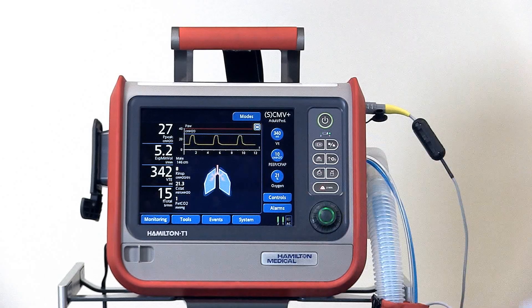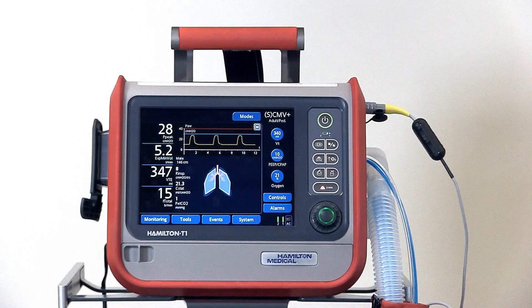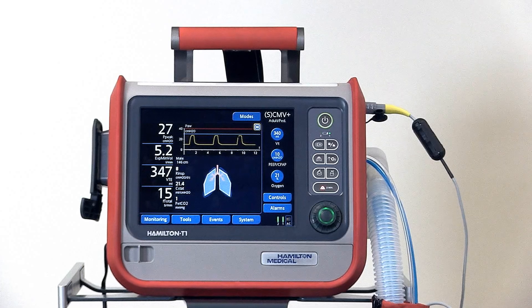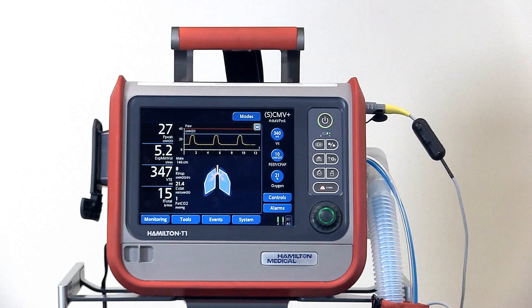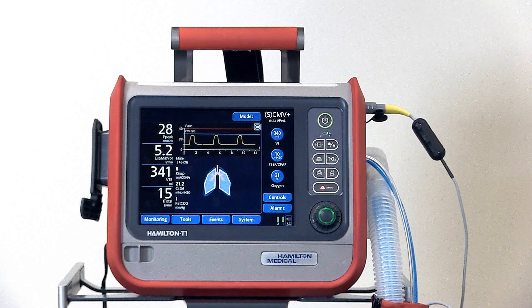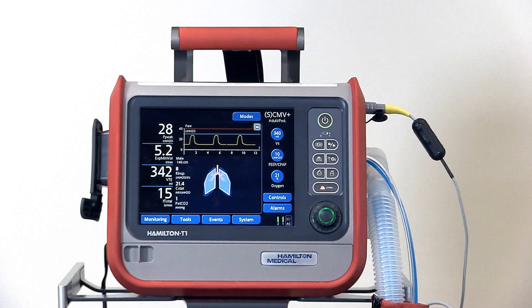The bottom window is adjustable. Right now we're displaying the dynamic lung, which is a graphic representation of the patient's lung mechanics including inspiratory resistance, static compliance, patient triggering, end-tidal CO2, and patient information.